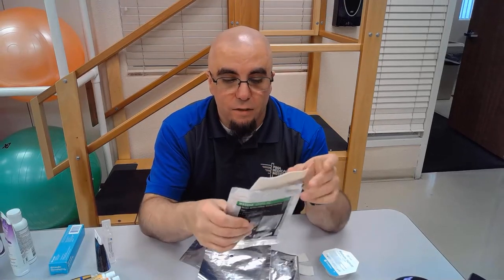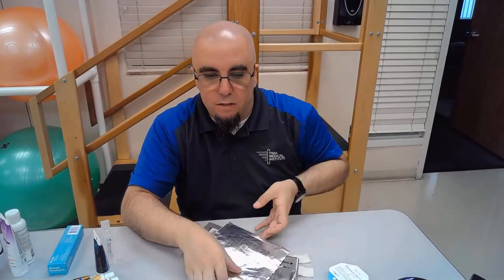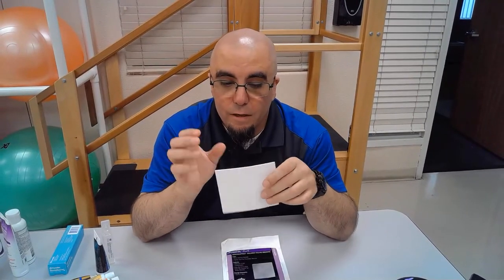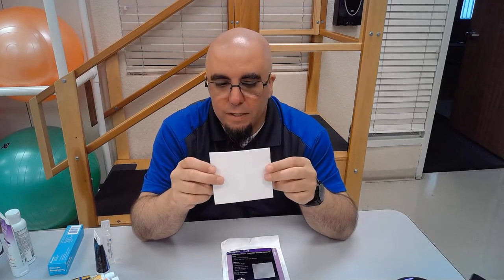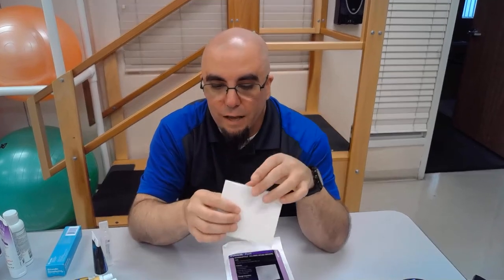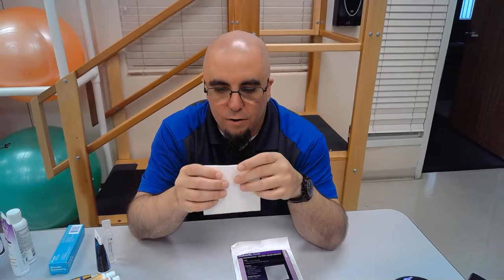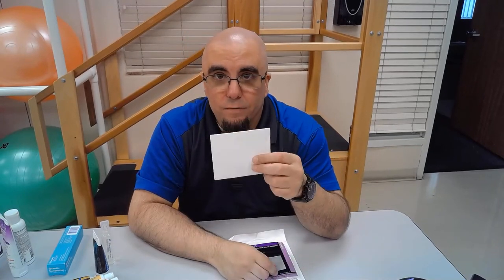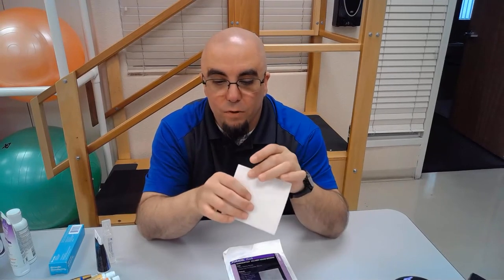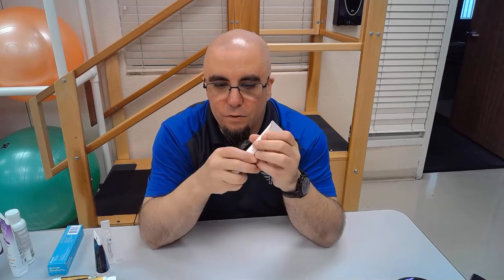This is Max Absorb AG — just another silver-impregnated dressing, slightly grayer than traditional white alginate. We also have collagen dressings for moderate to heavy drainage, similar to alginates. This is a PuraCol Plus dressing — it turns into a very soft, gooey gel after absorbing exudate, allowing easier removal. Collagen dressings are often used in static wounds or wounds stuck in the healing process to facilitate progress toward healing.